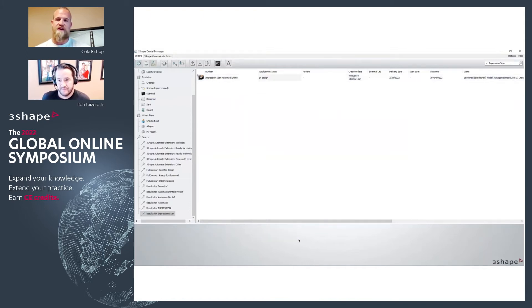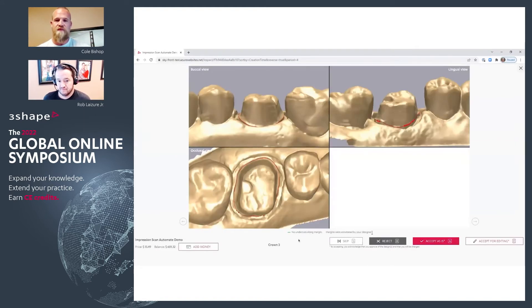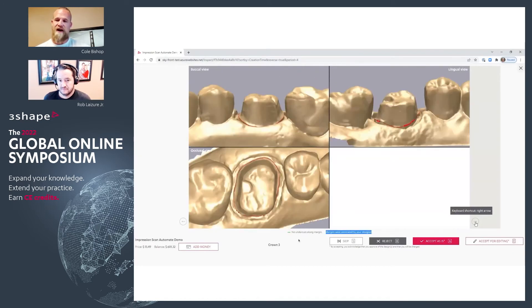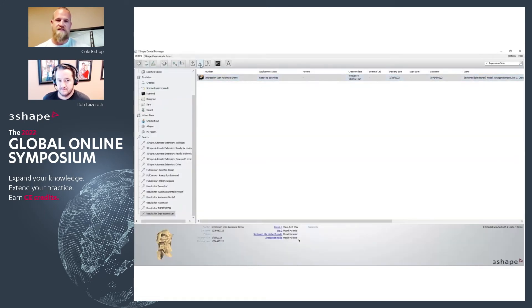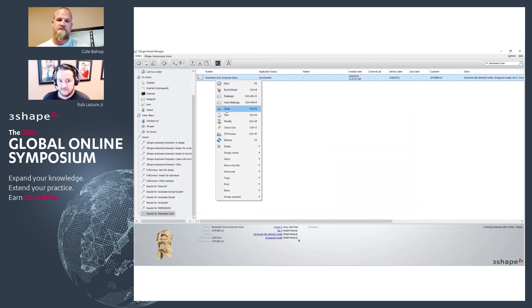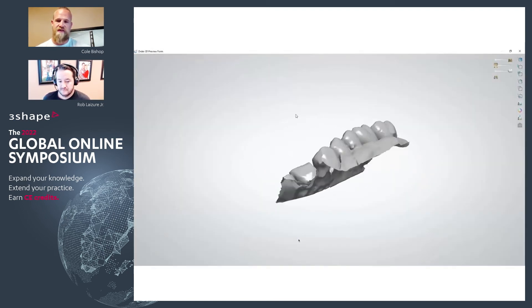Once that's been marked, upload it — you don't have to design the model yet. All you're doing here is marking that margin and sending it through. Then once that's been sent through and you accept for editing, you'll bring that order back in. You'll download this order, right-click, do a quick 3D preview, and make sure everything looks good.